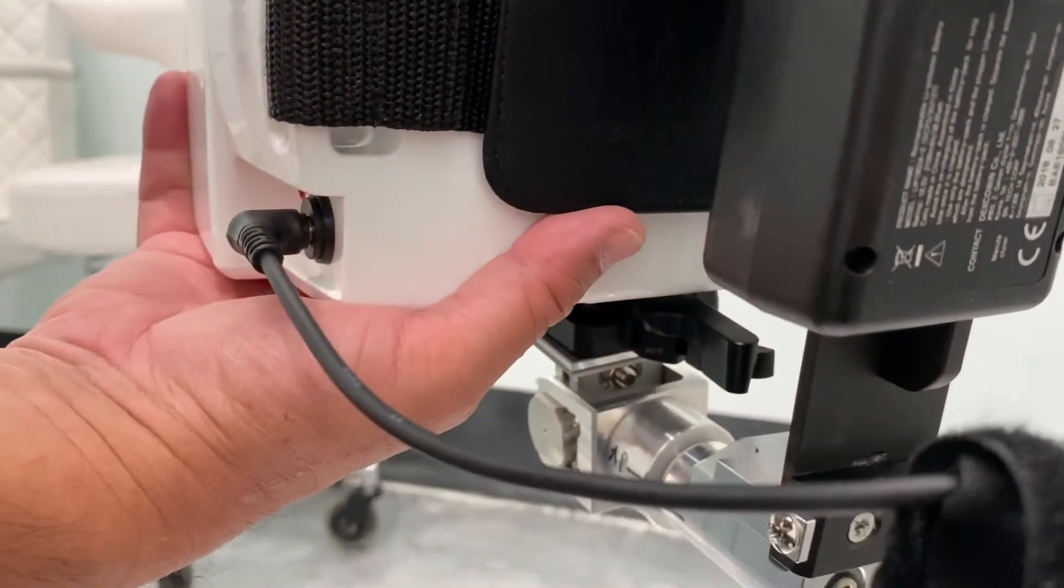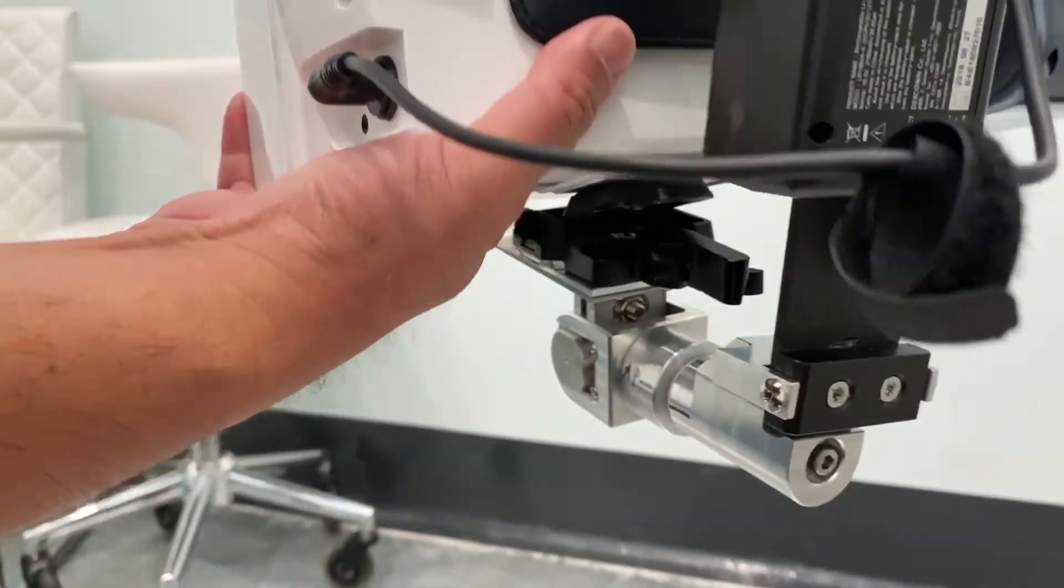At that point, grab the base of the camera, grab the handle of the camera and simply lift it out.